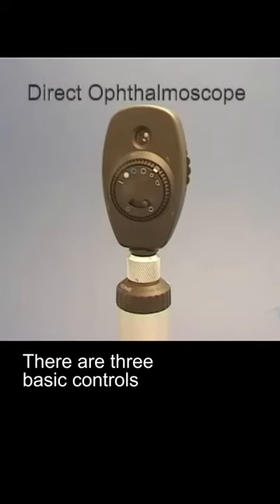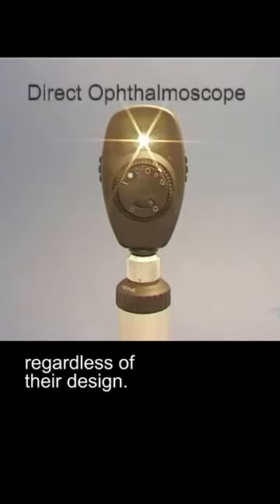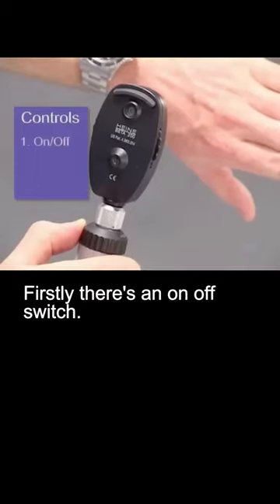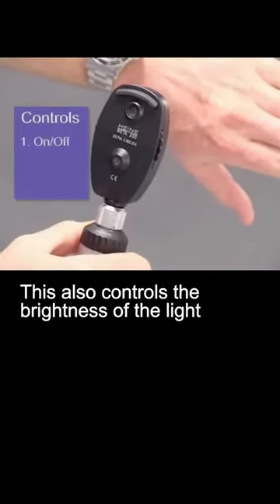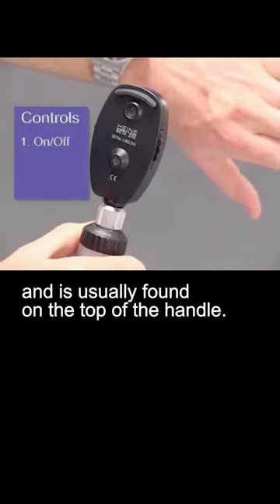There are three basic controls that are common to all modern ophthalmoscopes, regardless of their design. Firstly, there's an on-off switch. This also controls the brightness of the light and is usually found on the top of the handle.